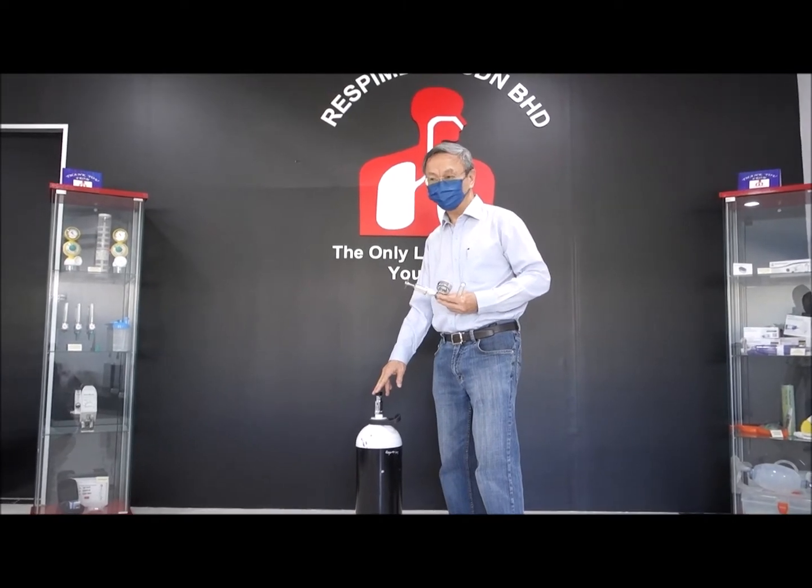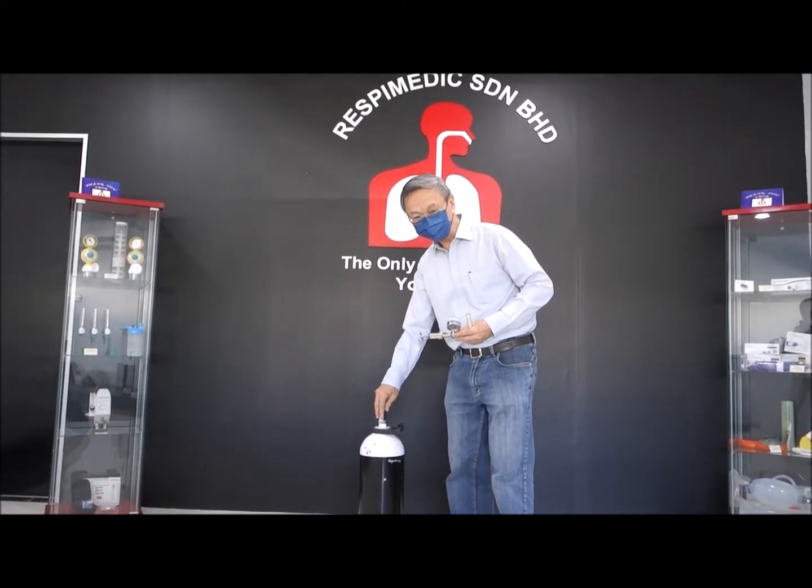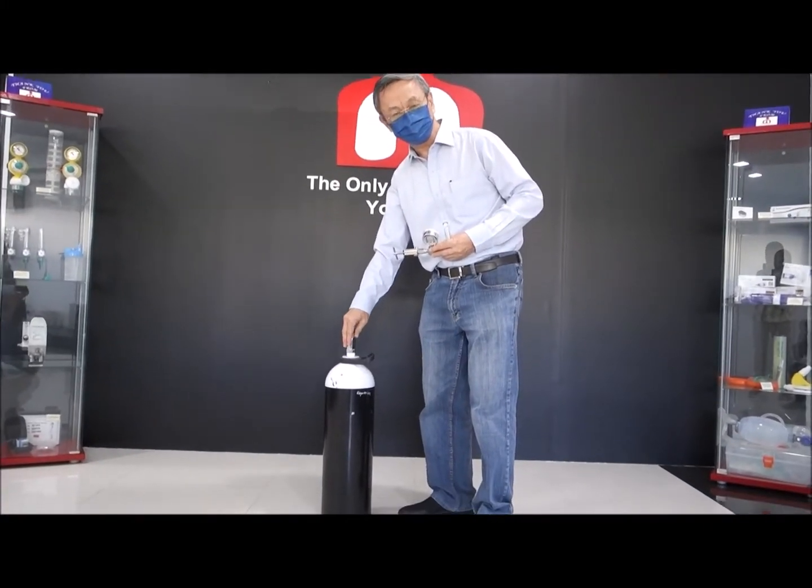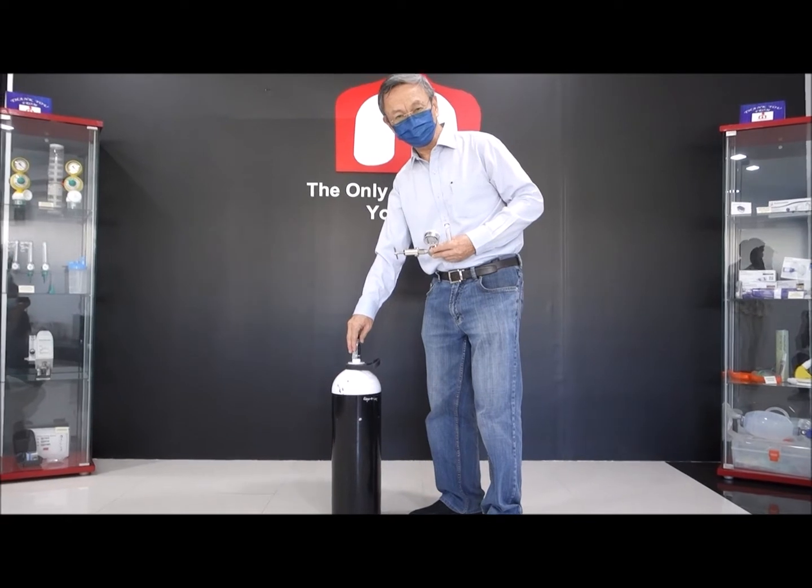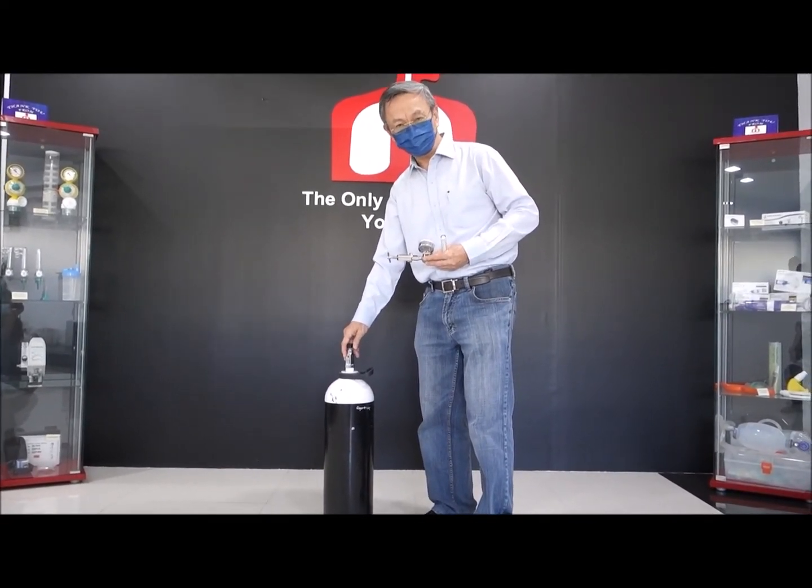It's very important to remember the safety aspect, because the pressure that is filled, the oxygen that is filled into this oxygen cylinder, is going to be around 2000 PSI. So you're talking about very, very high pressure.